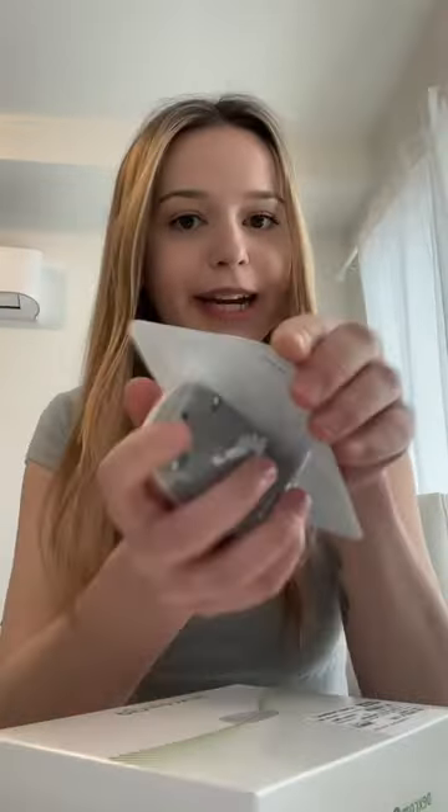We're putting on a brand new Dexcom. If you saw my YouTube video last week, I put on my very first Dexcom G7 — it's actually really dirty right now so don't look too closely at that. The pharmacy still doesn't sell the G7, and I'm pretty sure my insurance still doesn't cover the G7 yet.